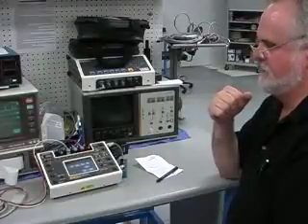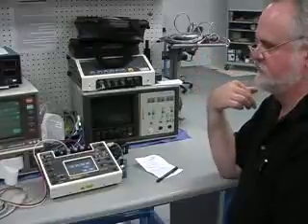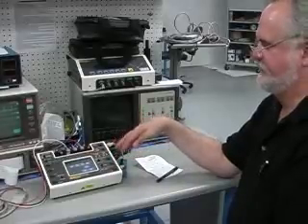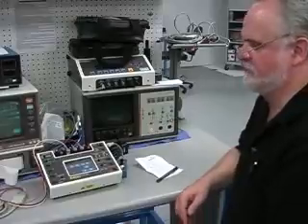And some of the other simulation devices: the MPS 450 is somewhat comparable to the MedSim feature-wise. This just has a little wider range of simulation features.